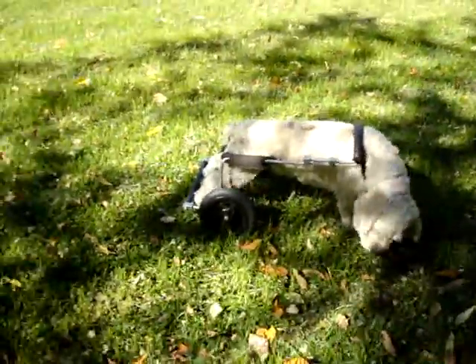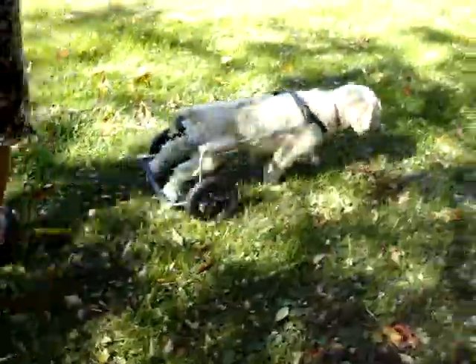And her feet are touching that rear crossbar, which is giving feedback — giving feedback to her feet — so it's going to stimulate that reflex. And the more you stimulate that reflex, the sooner she'll be walking. Oh my God. Alright, I love it. Come here, baby girl.